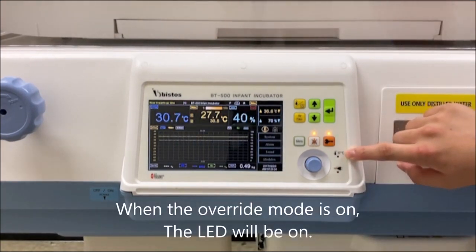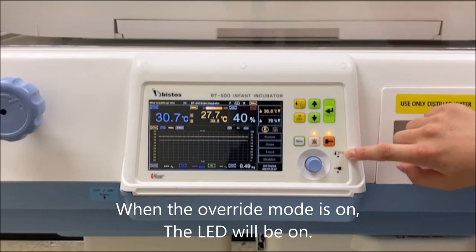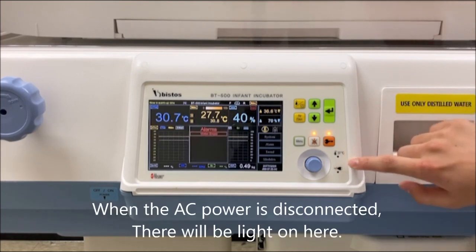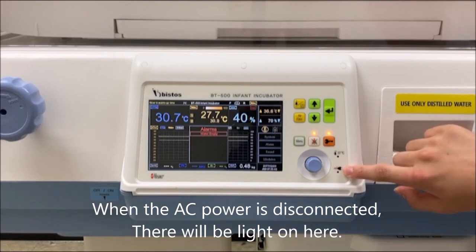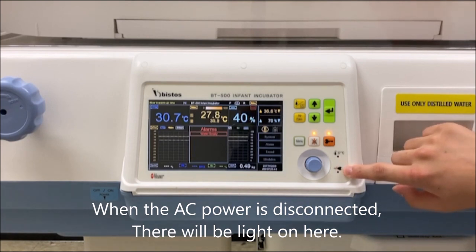When the override mode is on, the LED will be on. When the AC power cord is disconnected, there will be a light on this button.